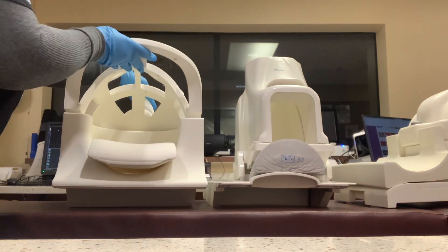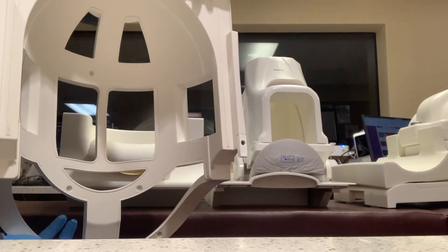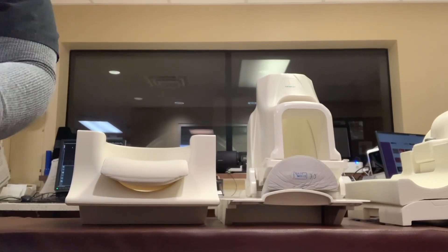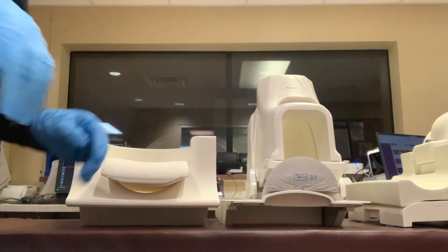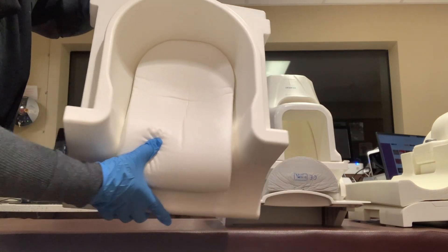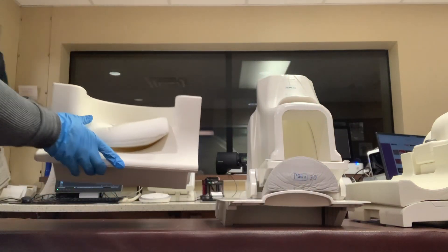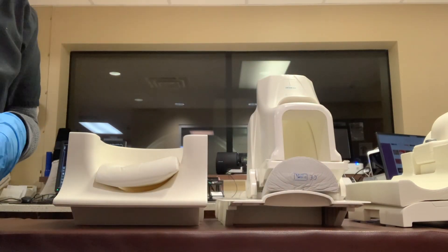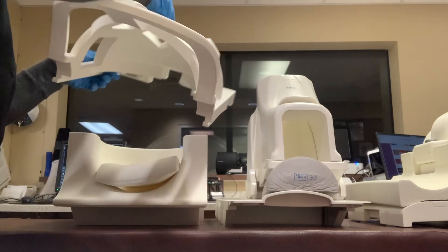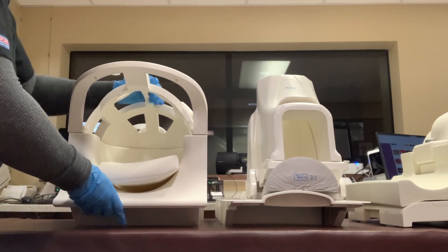I'm just showing you how you can operate each coil — how you can take it off and how you can put it back on. This is the anterior coil and this is considered the posterior coil; this is where the head or neck goes. You can put the anterior part back on and it just snaps back into place.